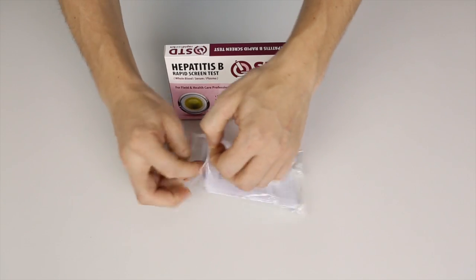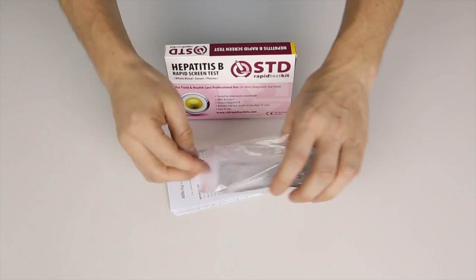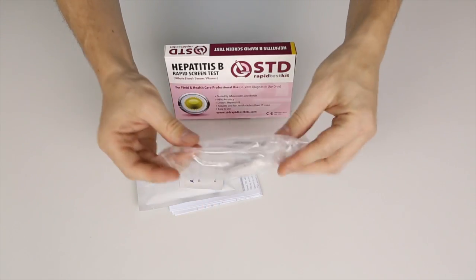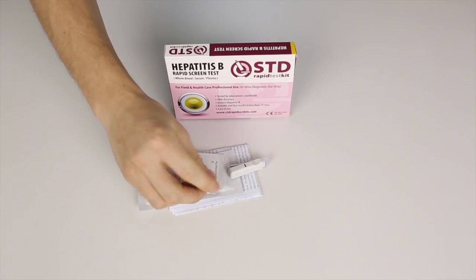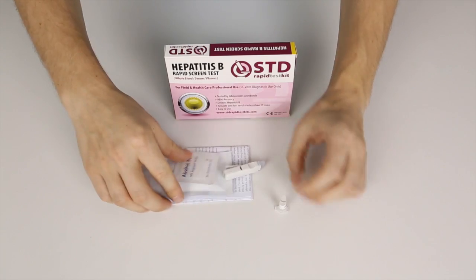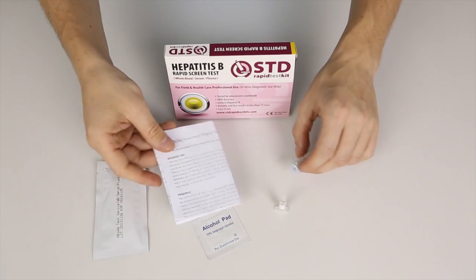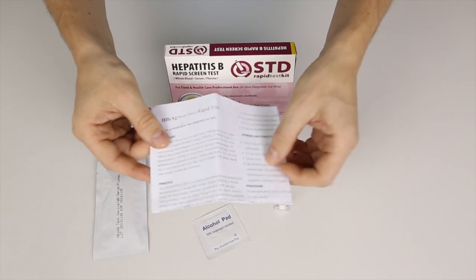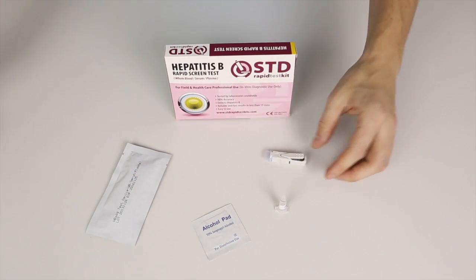I'll start off by opening the pouch and take it out. Now of course this is just the plastic bag — you don't need that, you can just dispose of it. These are all the parts. Here you have your user manual. When you fold it out you can read the material of the test. You can also use this video as a reference. Put that to one side.